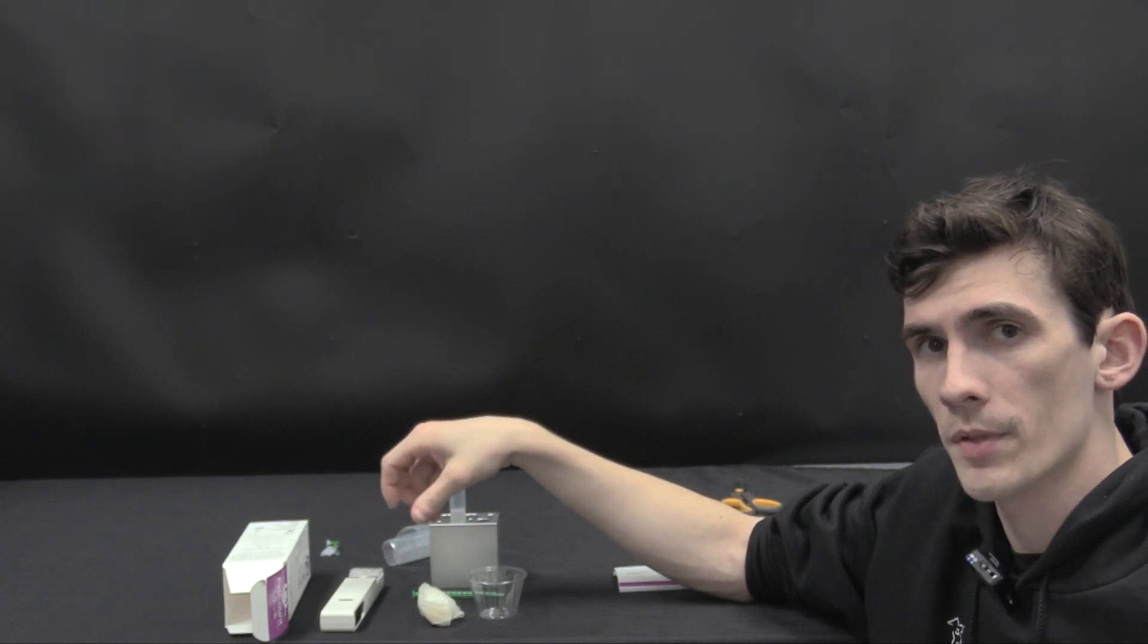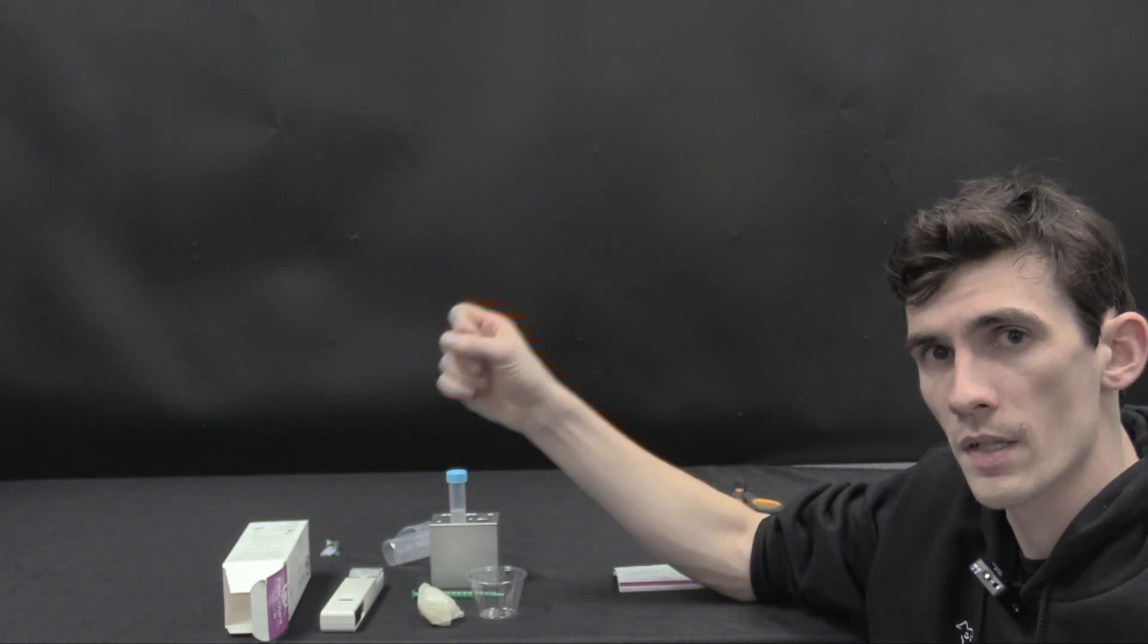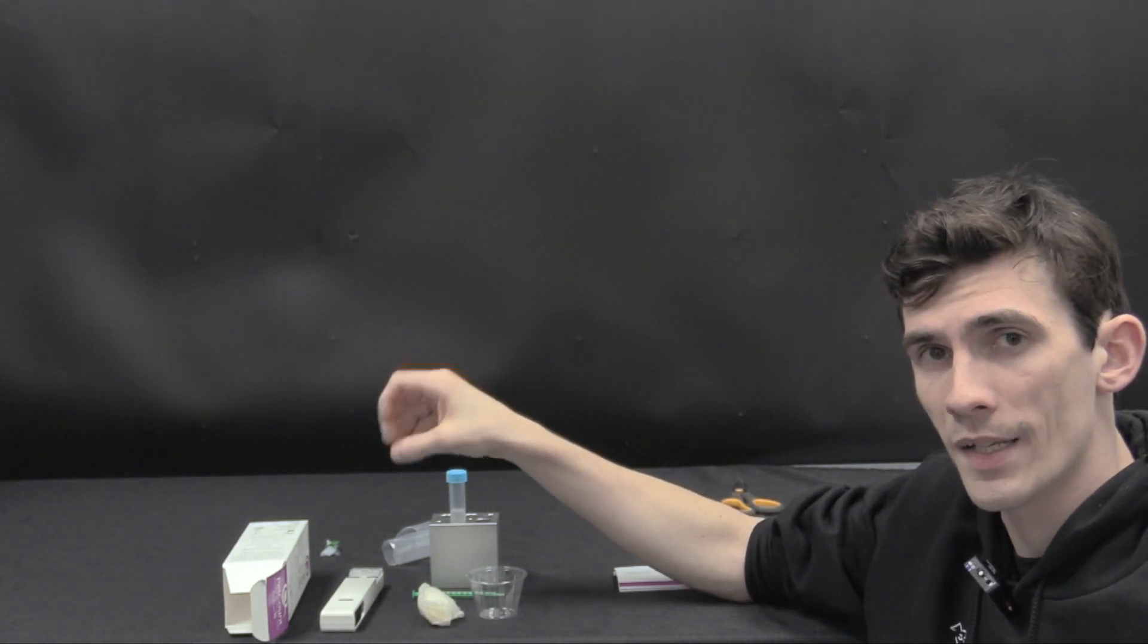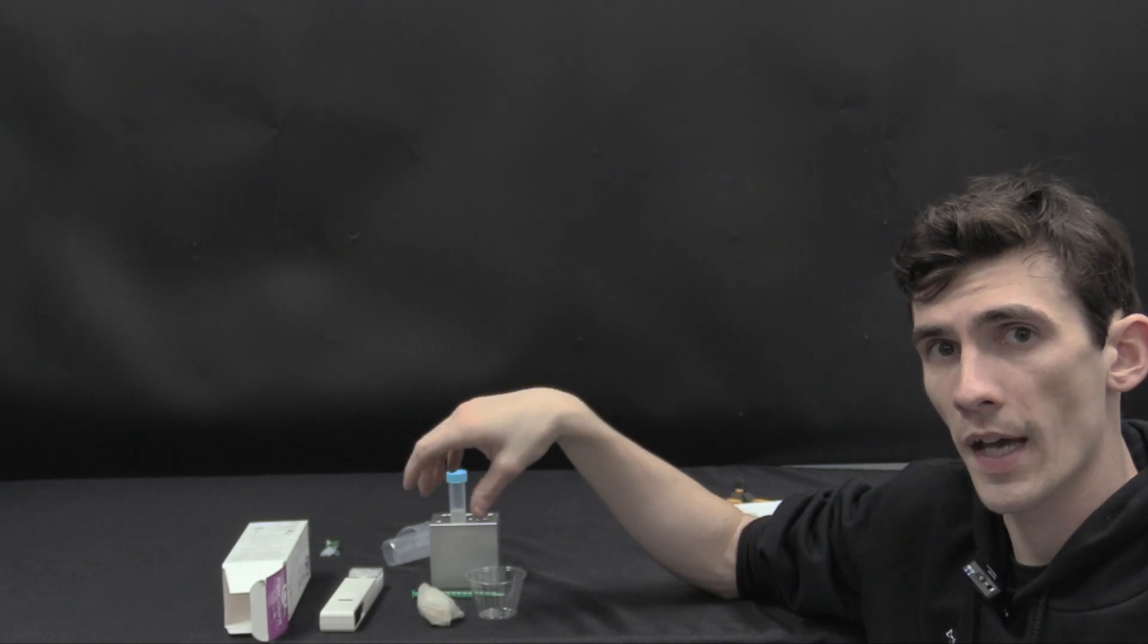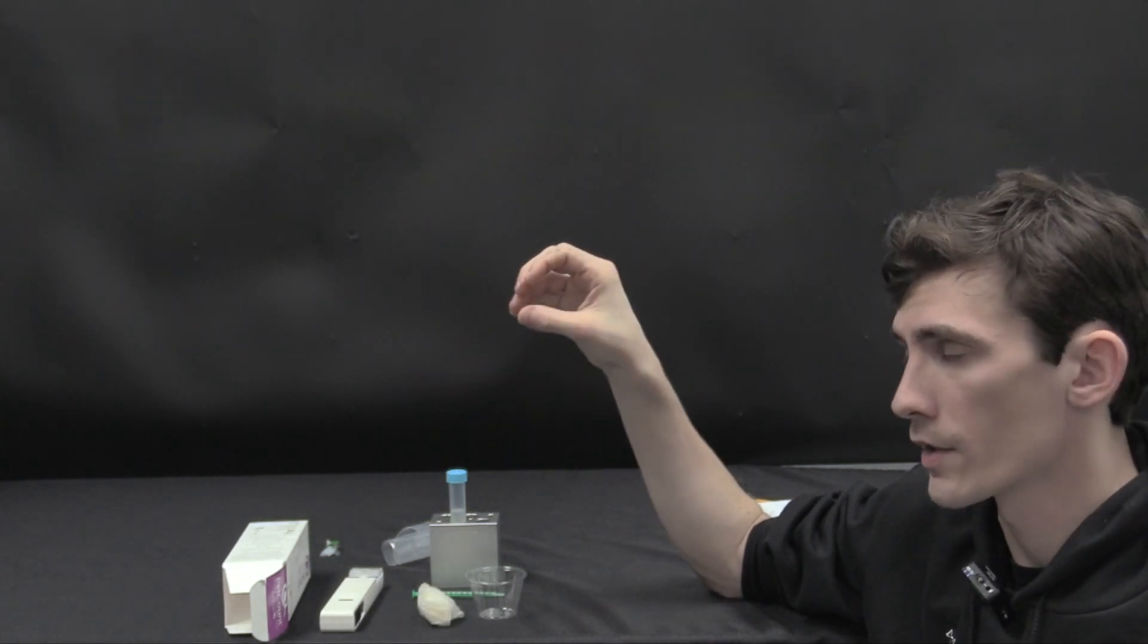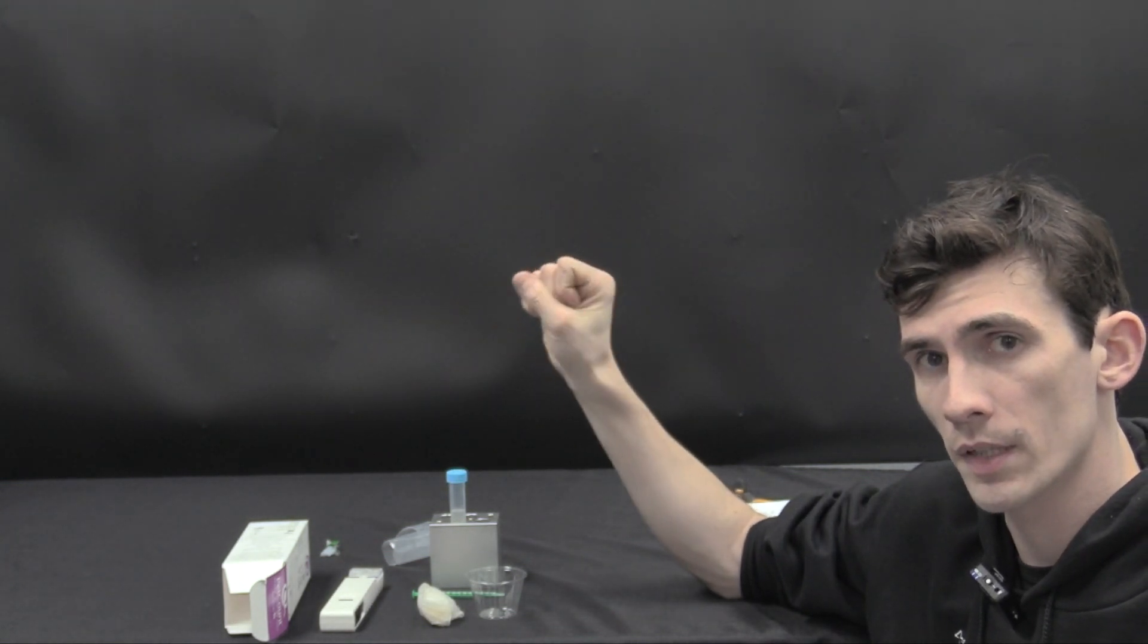The pet count really accomplishes cleaning out the clutter of sperm analysis checking only the most important ones, the PMSCs, to determine if your dog's semen is at a good value or not. The best way to go about this test is to use raw semen without any extender or dilution added as we want to see does the semen by itself before dilution meet the threshold above 210 million per milliliter of those good and healthy cells.